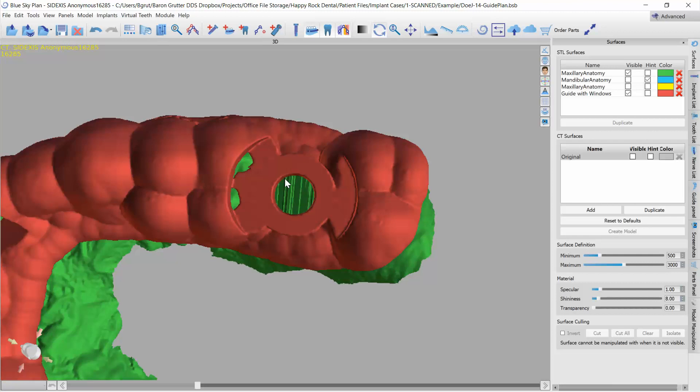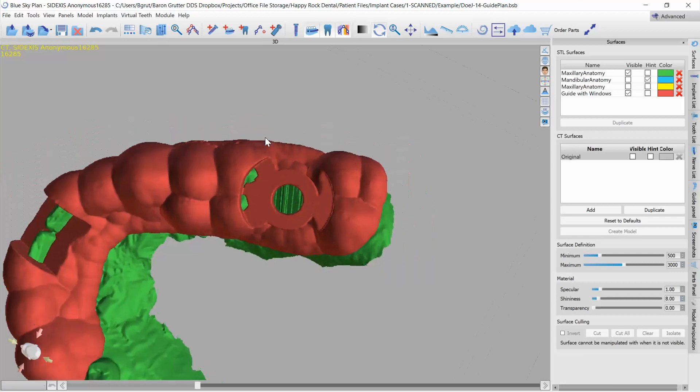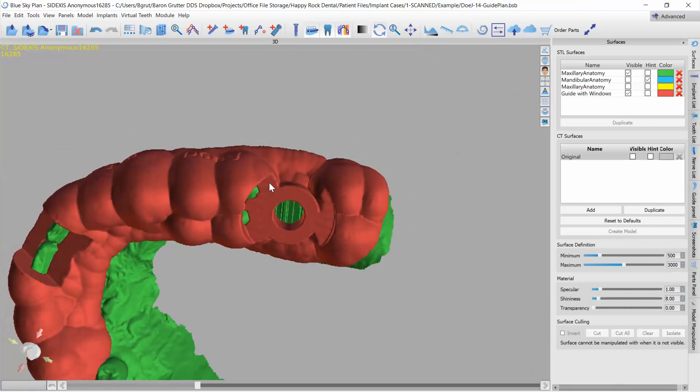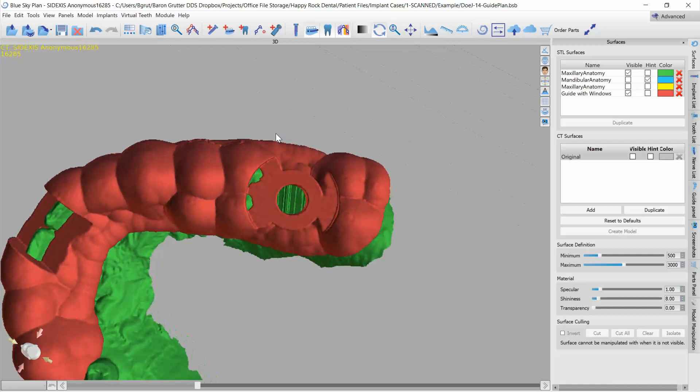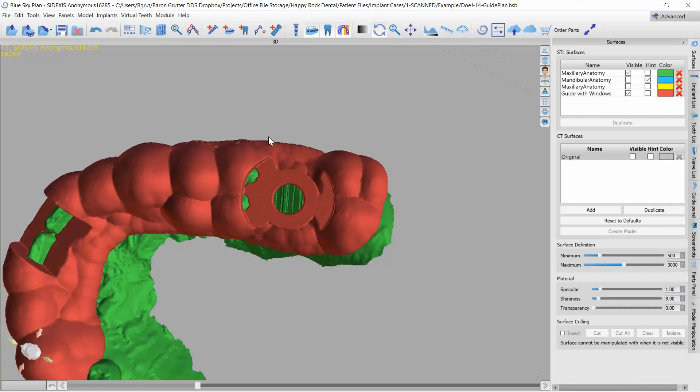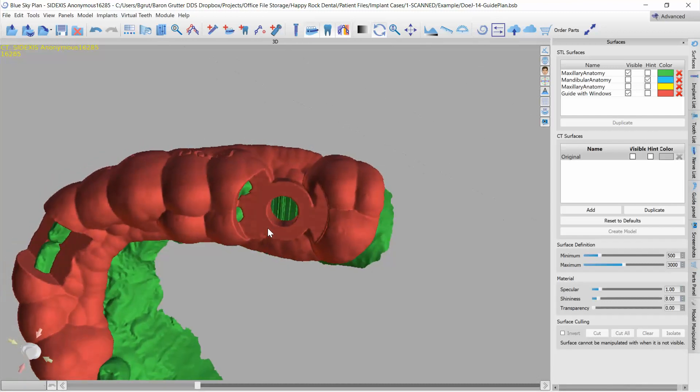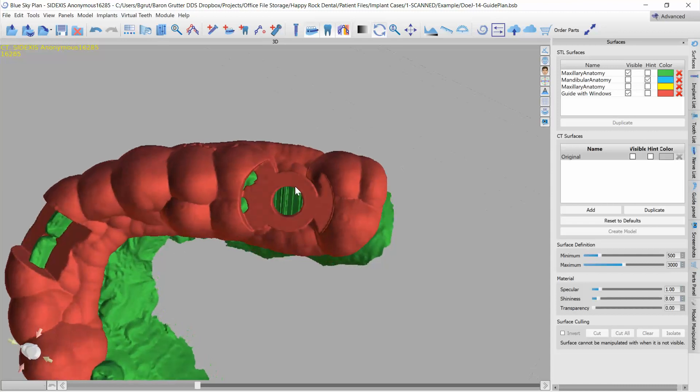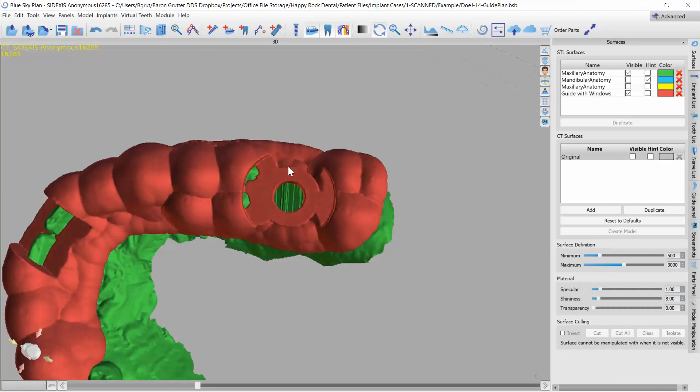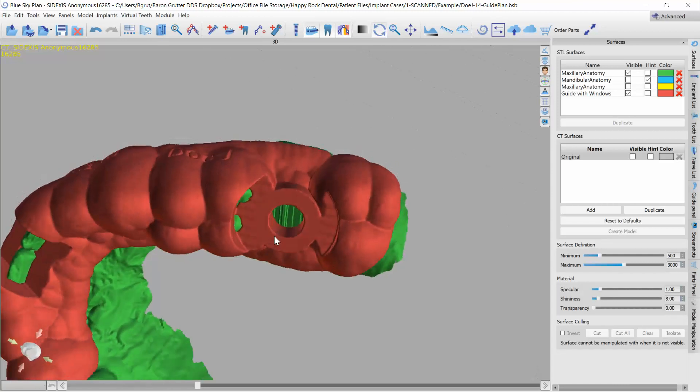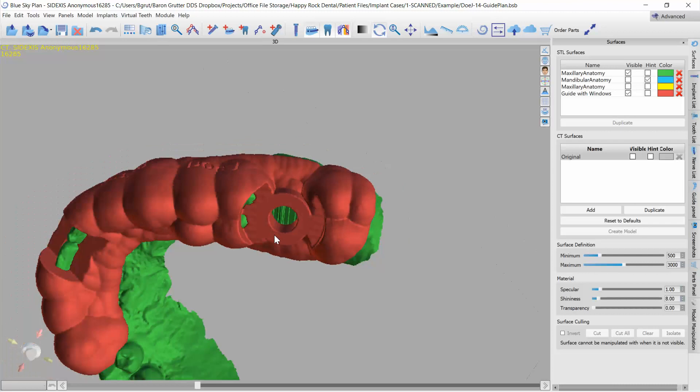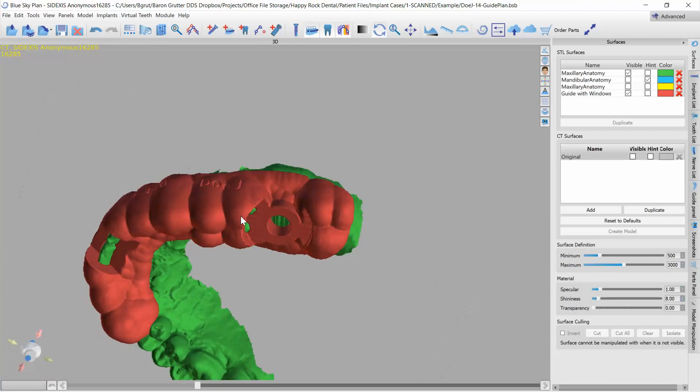For me, I usually just use a direct printed guide because I use the Blue Sky Bio's fully guided kit and its guided portion of the drill is a cylindrical non-cutting so it can slide in and out of the resin without actually honing it out or introducing shavings to the osteotomy. So this is just a quick video on how to do this.